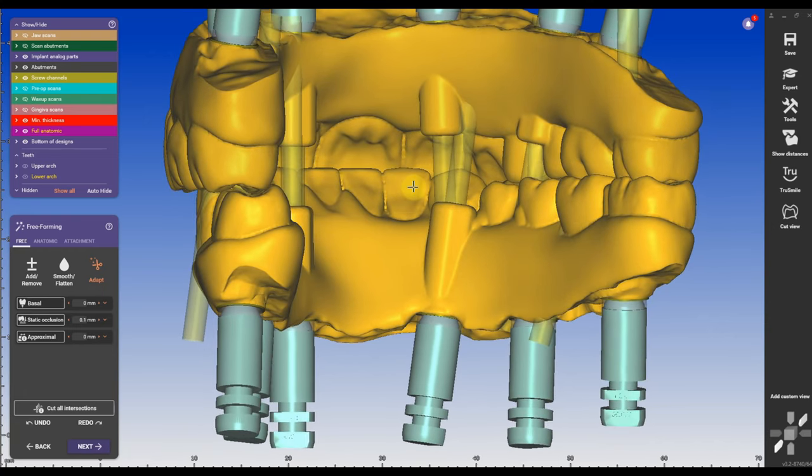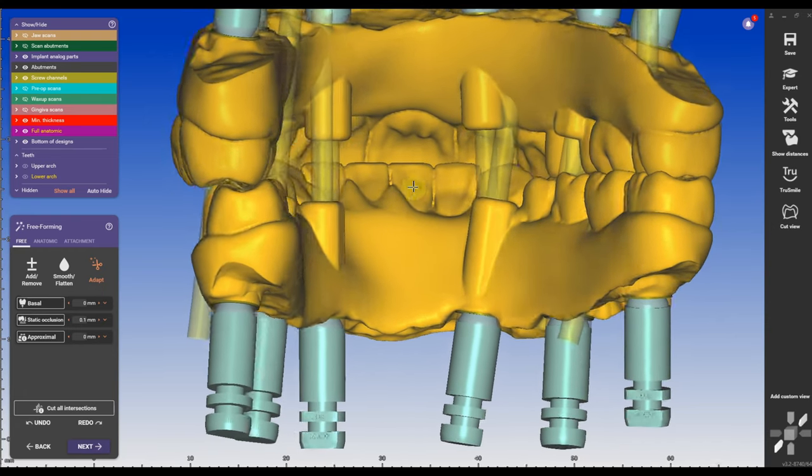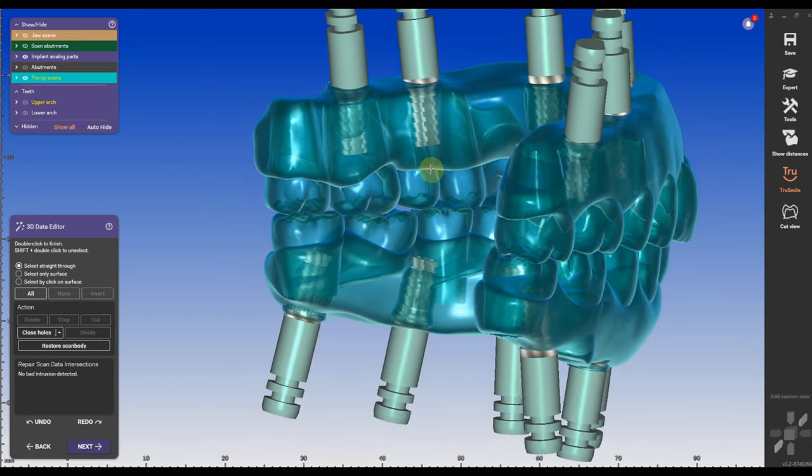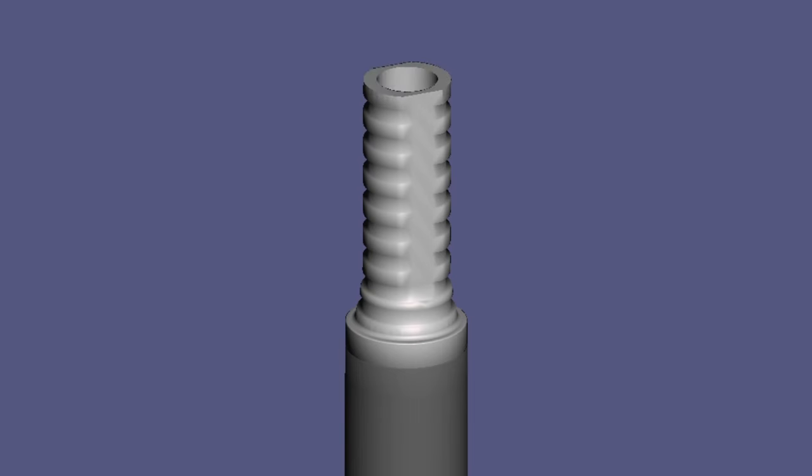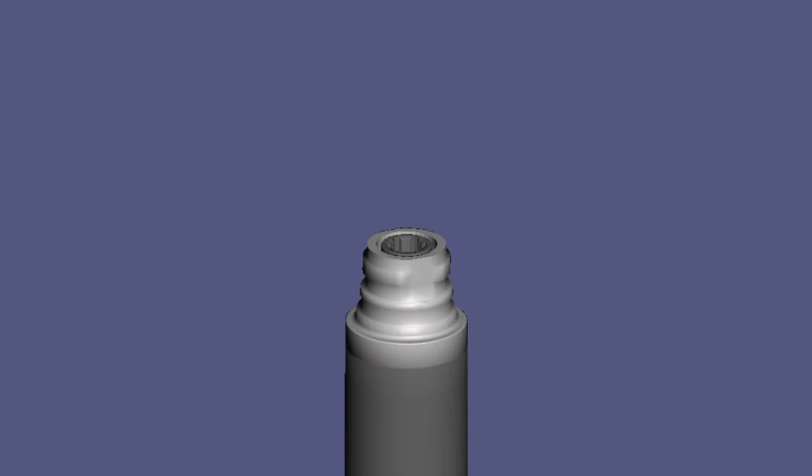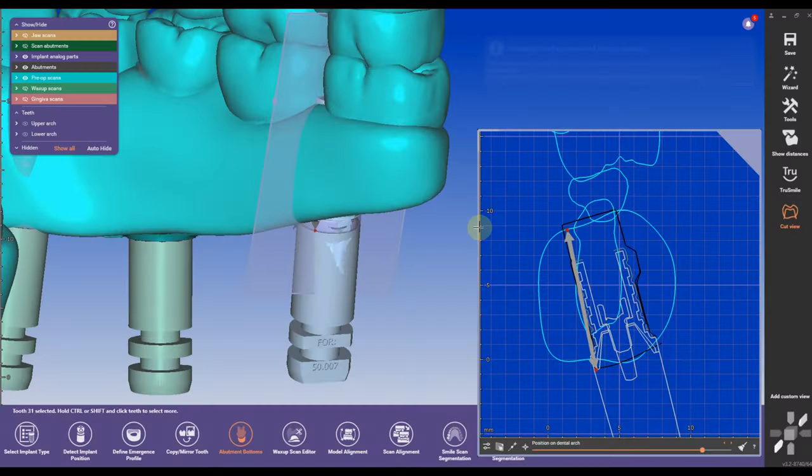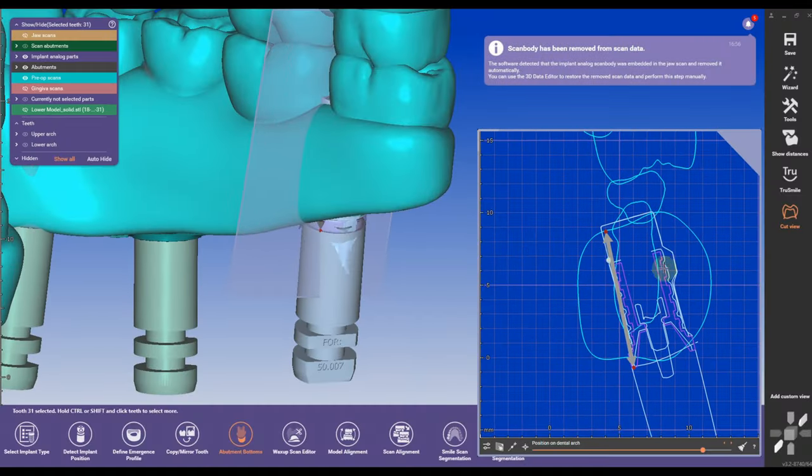Are you tired of the endless cycle of guesswork when it comes to adjusting the height of multi-unit temporary cylinders? I was tired as well, so I created a digital library to put an end to this frustration, allowing you and me to adjust the height of each temp cylinder digitally. Don't let the guesswork slow you down. With this library, the days of tedious rescanning and modifications of the designs are gone. Now you can accurately measure and visualize the correct height of each temp cylinder in your very first design, saving you valuable time and effort.